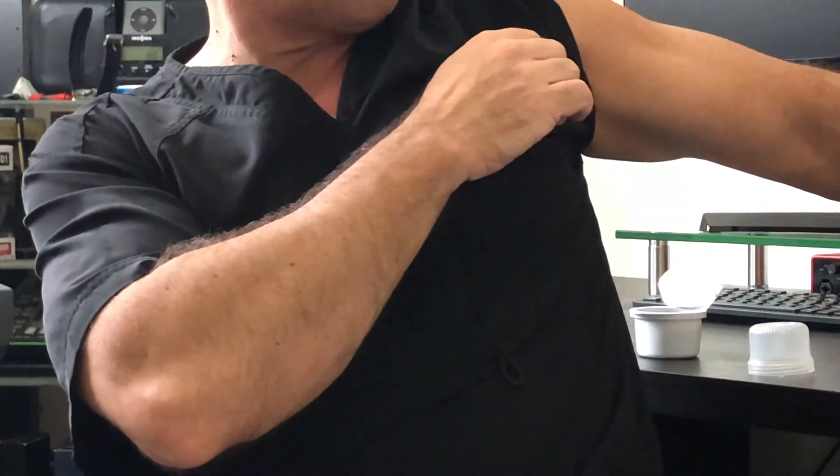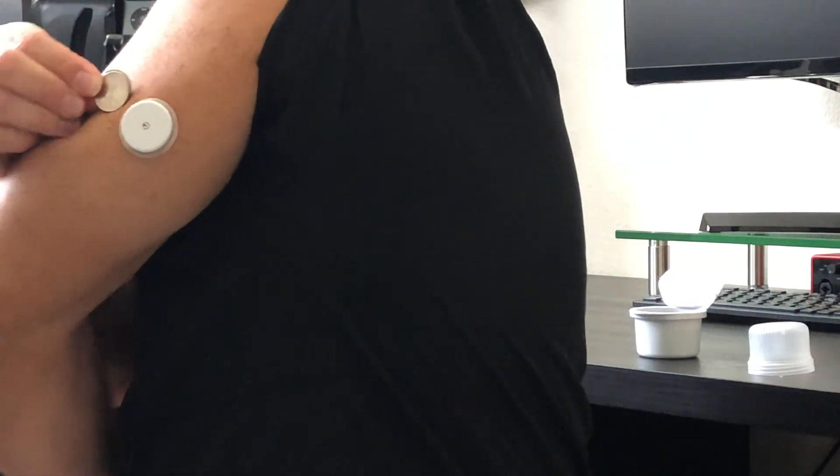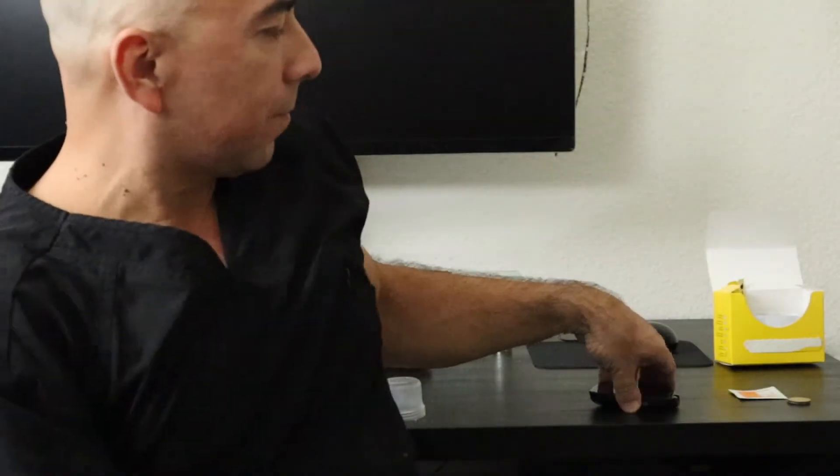You can see it's kind of a quarter size — not too thick. Then I'm going to get this reader, turn on the power button. It says 'start new sensor.' It'll take me 60 minutes — an hour — for this to get all ready to go. In an hour I'll show you my first blood sugar. So be back in a little bit.